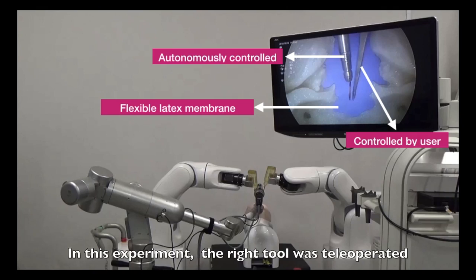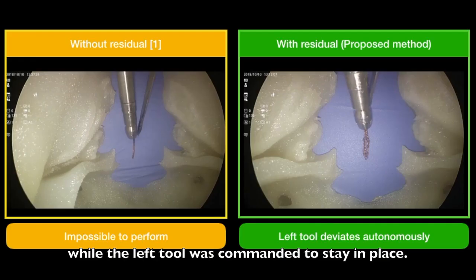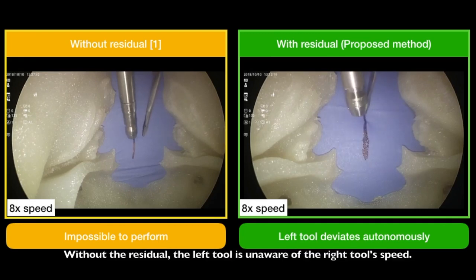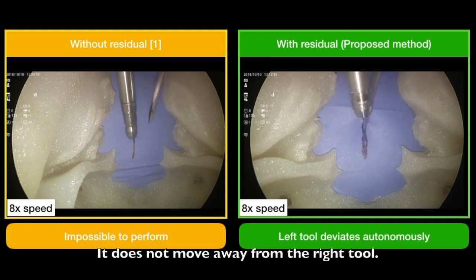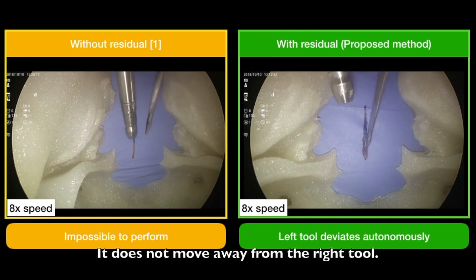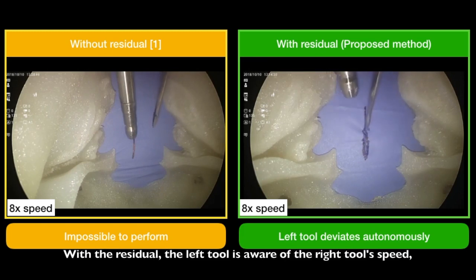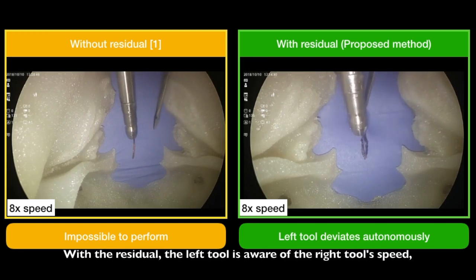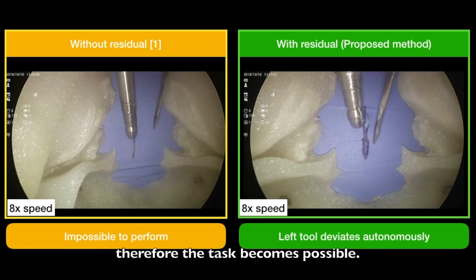In this experiment, the right tool was teleoperated while the left tool was commanded to stay in place. Without the residual, the left tool is unaware of the right tool's speed and does not move away from the right tool. With the residual, the left tool is aware of the right tool's speed. Therefore, the task becomes possible.